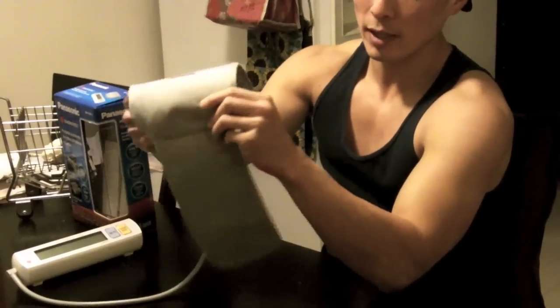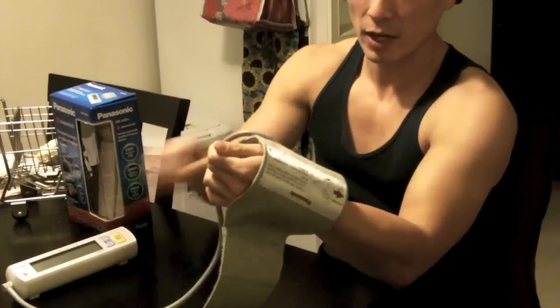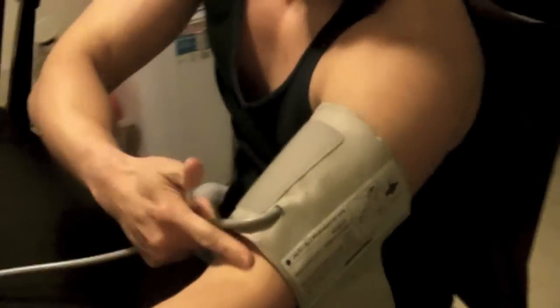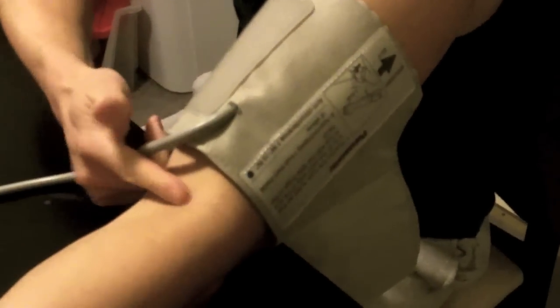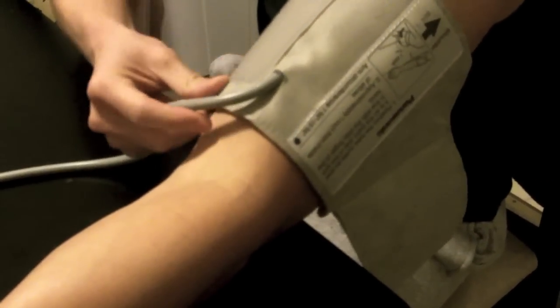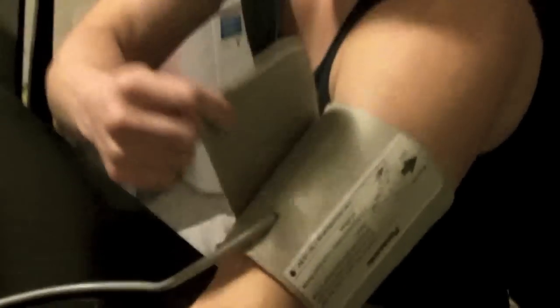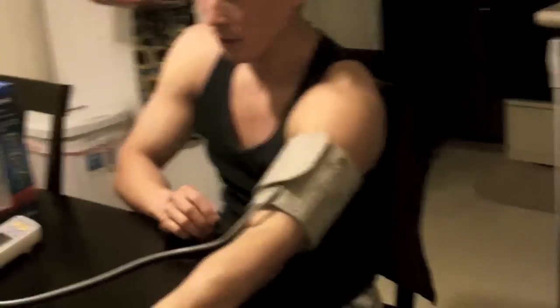You want to make sure your palm is facing out. Take the cuff, open it up, and look for the crease where the forearm and bicep meet. You want to place the cuff a little bit above the elbow crease — not right on it. The cords should be on the inside of your body, and then just wrap it around like this.